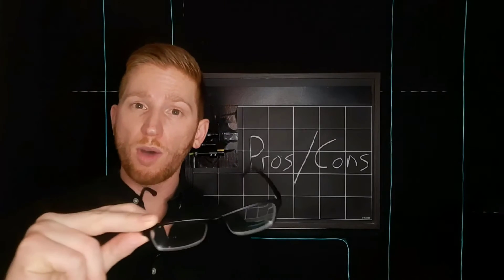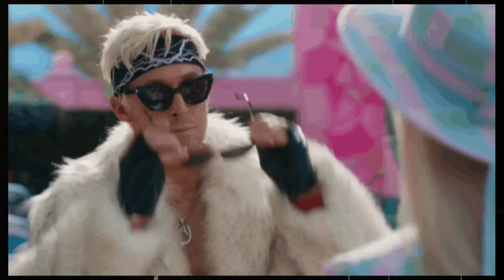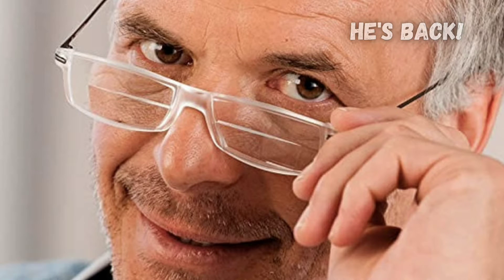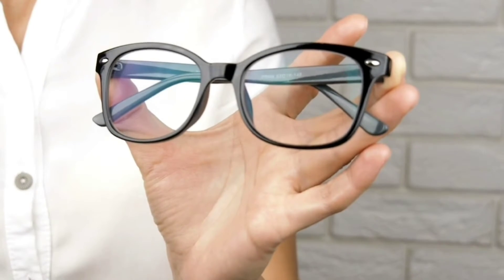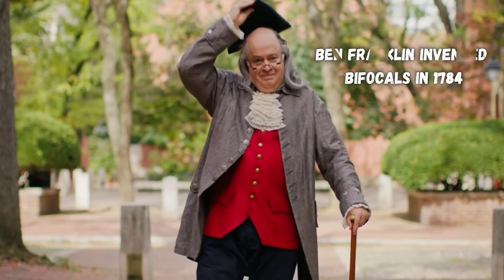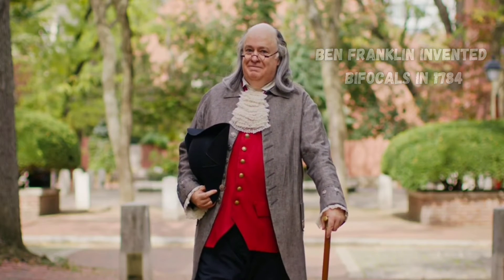Pros: You only need one pair of glasses to do a bunch of different things pretty well. You don't need separate reading glasses to help you see up close. There isn't a sharp transition between different sections of different powers. And that smoother look of progressive lenses doesn't make you look older like the noticeable lines on bifocals or even trifocals can.